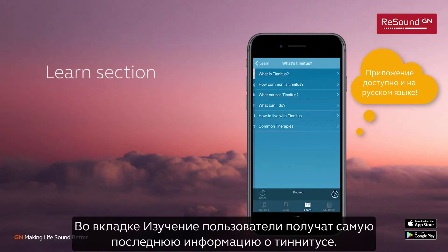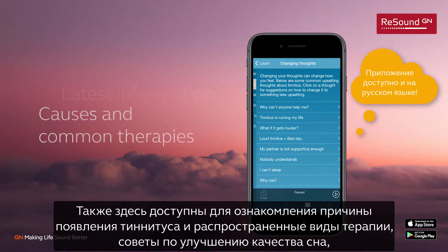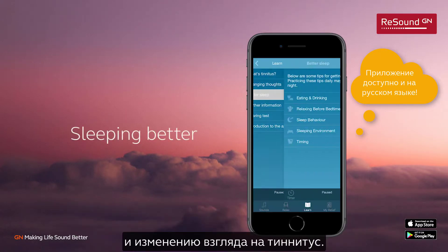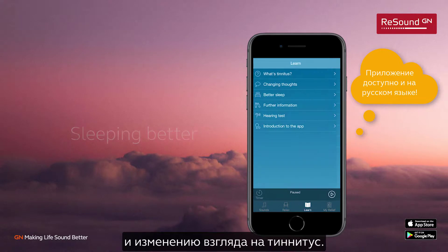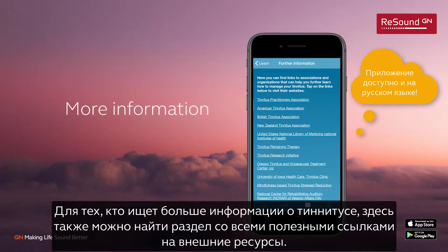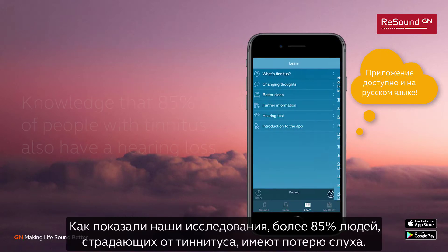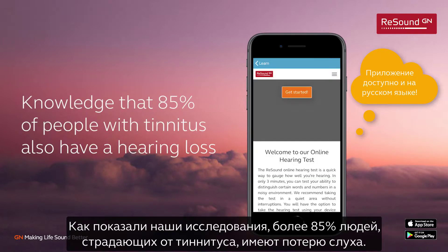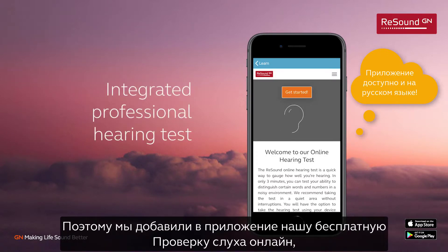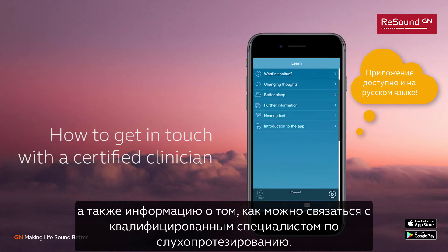The Learn section will educate users on the latest information about tinnitus, causes, and common therapies. In addition, tips for sleeping better and managing one's perception of tinnitus are also available. For those looking for more information, additional links are provided to access outside the Relief app. Based on our knowledge that 85% of people with tinnitus also have hearing loss, we have added our professional hearing test inside the app and how to get in touch with a certified clinician.